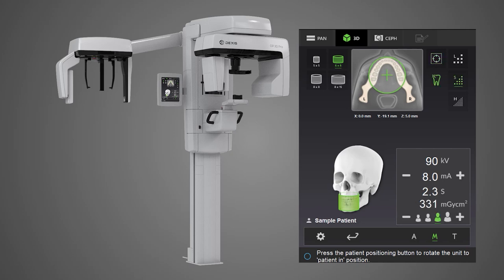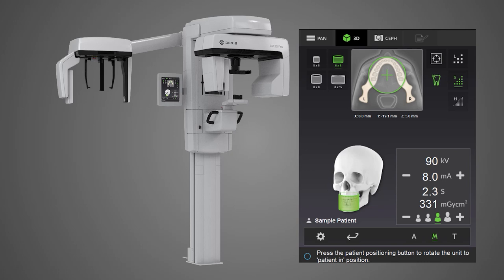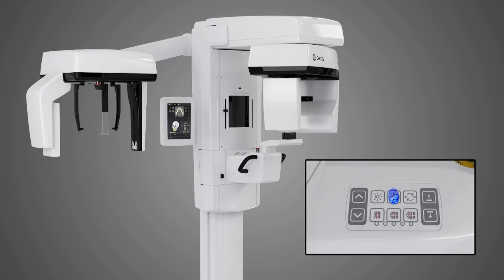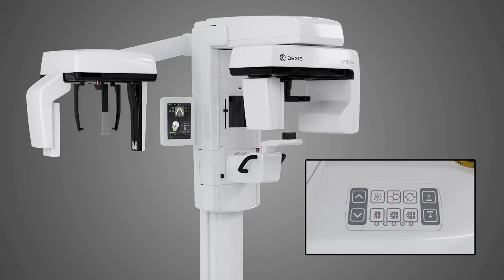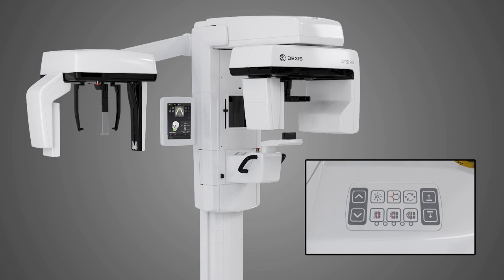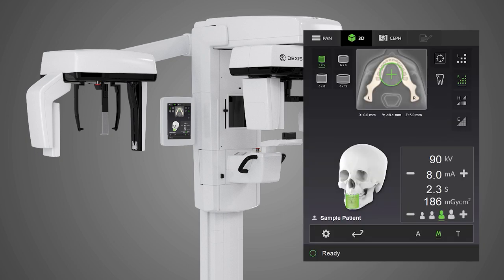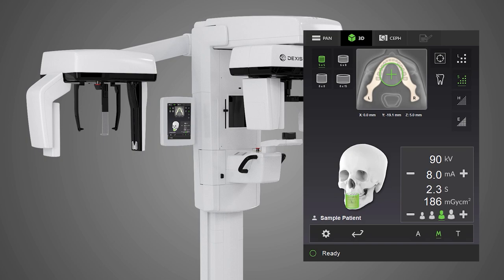Set MAR — the metal artifact reduction feature — to on or off based on your estimation of the need to reduce scatter that can appear in images of patients with a high amount of metal restorations. Tap the patient-in button on the positioning panel. The unit will rotate into the patient-in position. When the ready indicator on the panel turns green, the unit is ready for a patient.